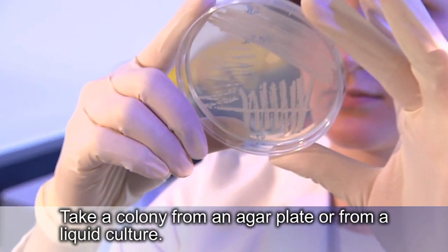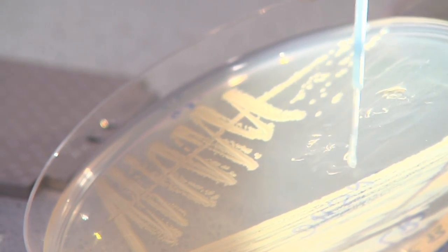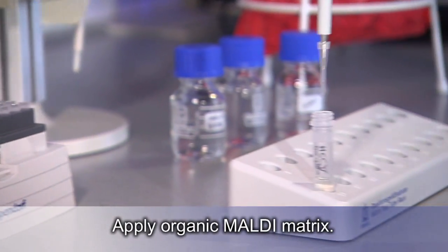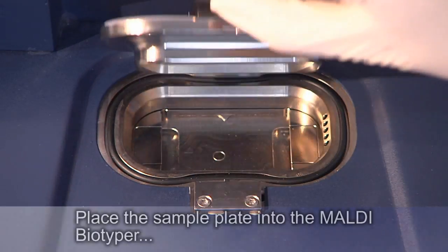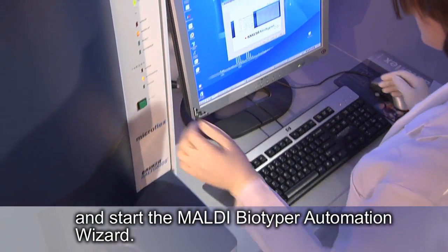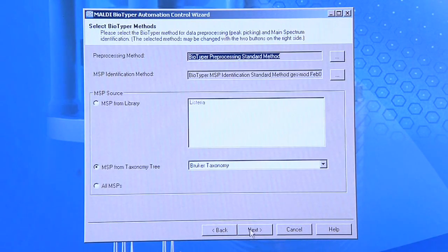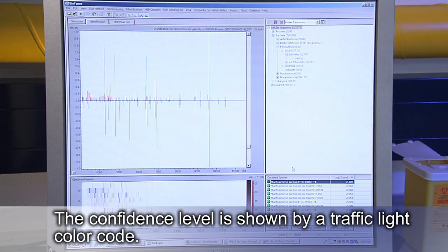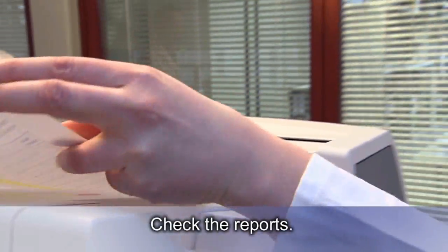Take a colony from an agar plate or from a liquid culture. Use simple sample preparation procedures. Apply organic Maldi matrix. Place the sample plate into the Maldi Biotyper. And start the Maldi Biotyper automation wizard. The confidence level is shown by a traffic light color code. Check the reports.